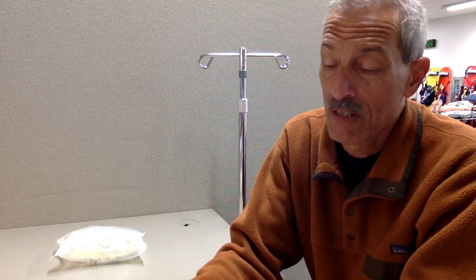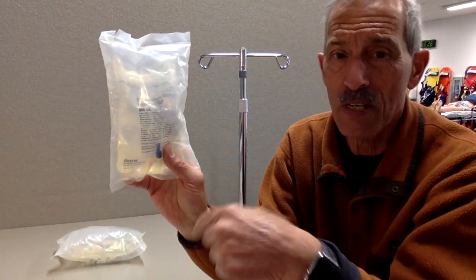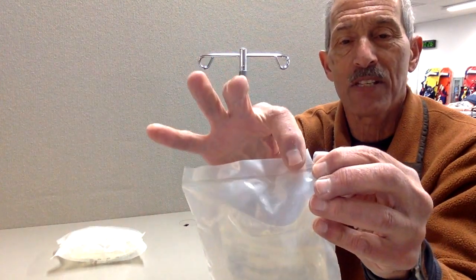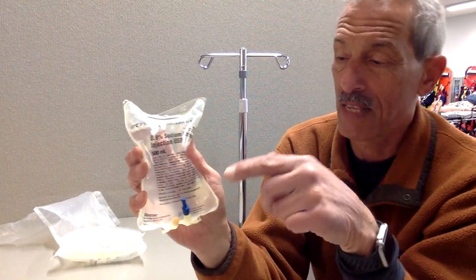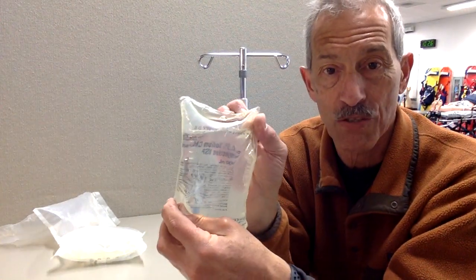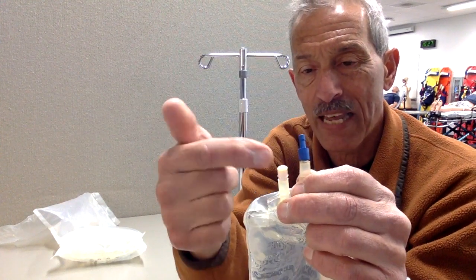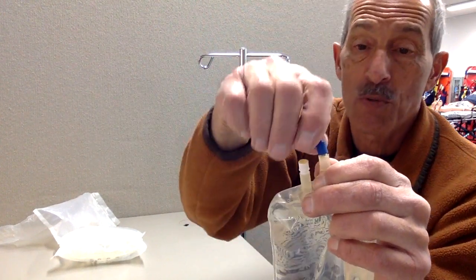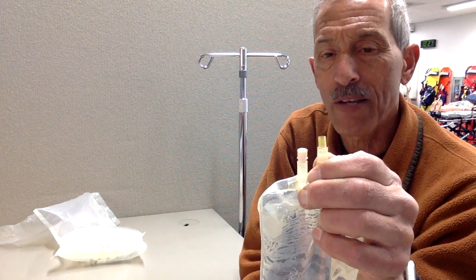Normally we have a 1000 cc bag and the 250 cc bag. What I have here are 500 cc bags — these are found in hospital settings primarily. You'll notice they come in an outer bag; this is a sterile procedure. They're all going to have tear points where you actually tear the bag open and remove the IV bag. You want to make sure it's not expired and check for clarity — make sure there's nothing floating in it. You have two ports here: the smaller port is for the medic injecting medications into the bag, and the blue port is where you actually spike the bag. That's a sterile area — you don't want to touch that tip.